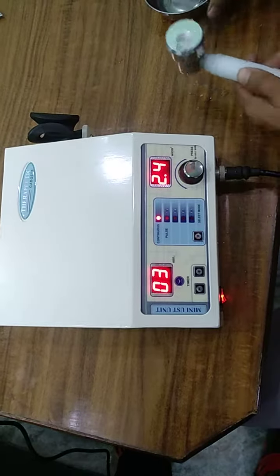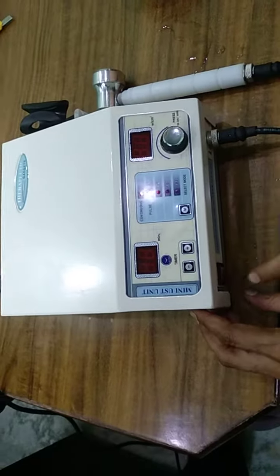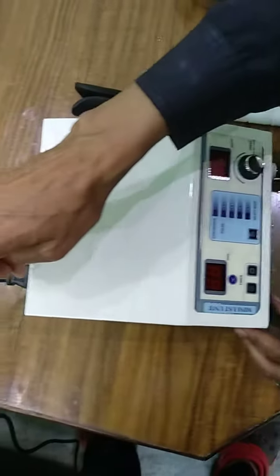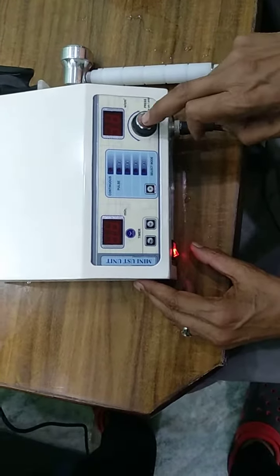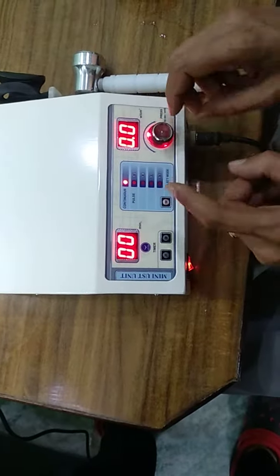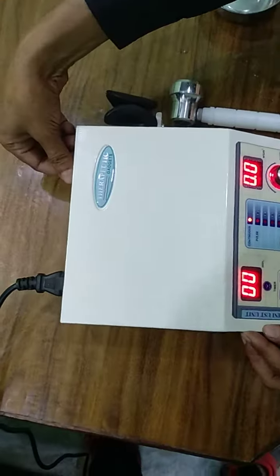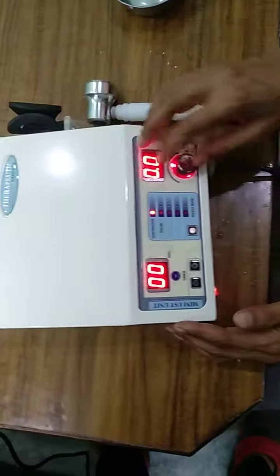You have to change the fuse if this light will not indicate. Then you have to change this fuse. Also, if it is giving any sound after starting, then you have to change this fuse. I hope you will resolve the issue of your unit. Thank you.